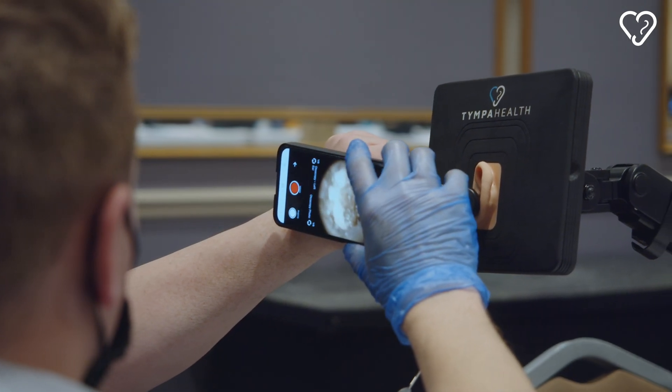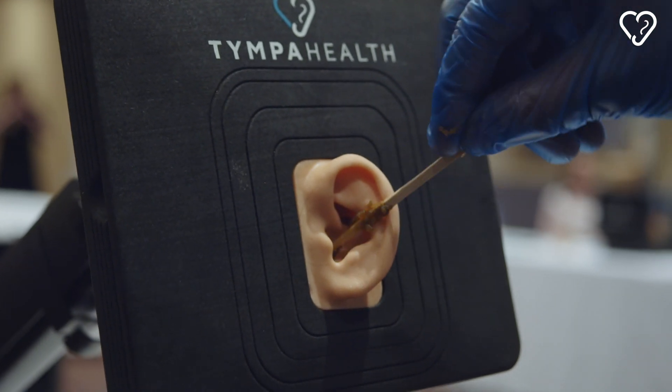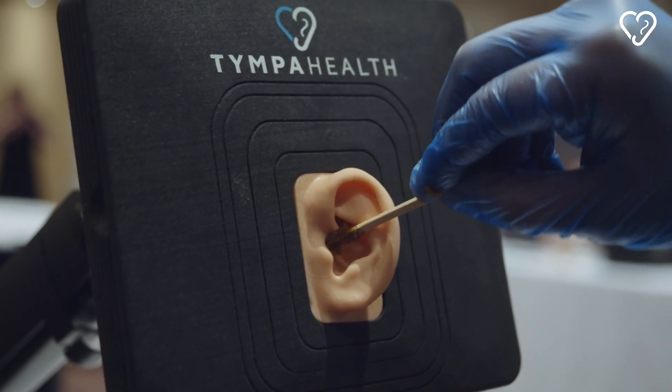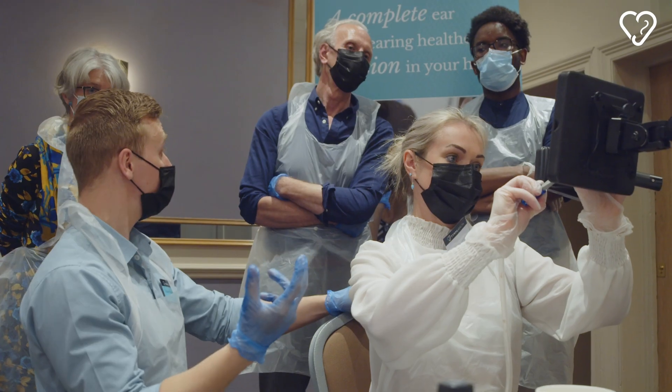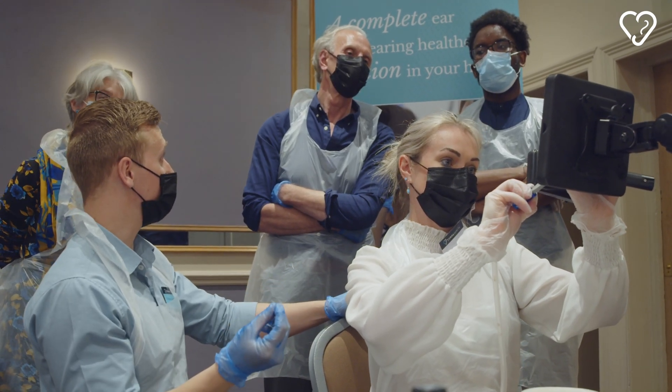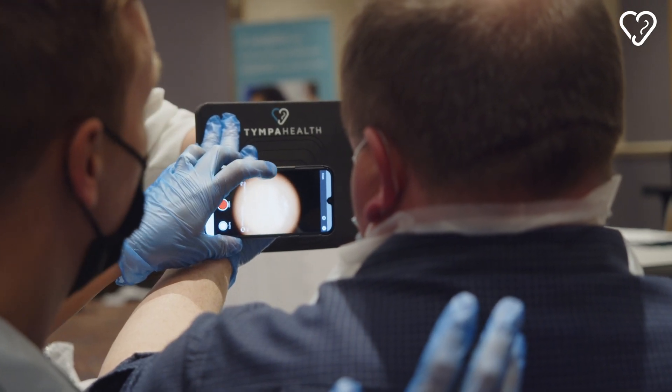If you use simulated wax, then you're preparing them for the real thing. In the past we maybe had to use elastic bands, peanut butter even — it just wasn't the same, it's not realistic. What we've now got looks like wax, feels like wax, and means that different consistencies — soft wax, hard wax — give trainees an awareness and a confidence with what they're dealing with in the real world. From a training point of view, it's great because we can see their confidence grow as they develop their technique, which is not easy to replicate — but we've nailed it.